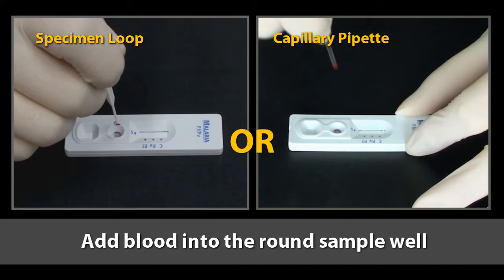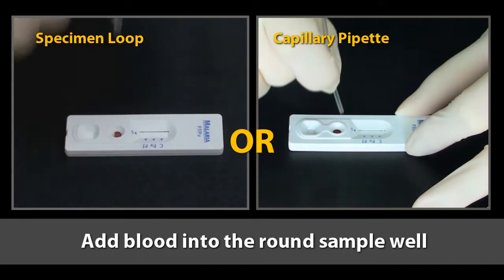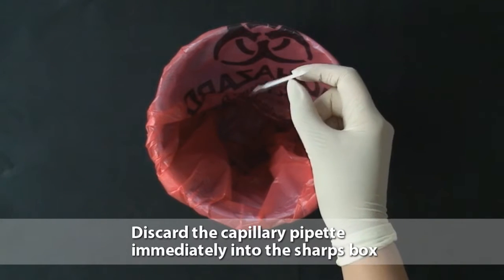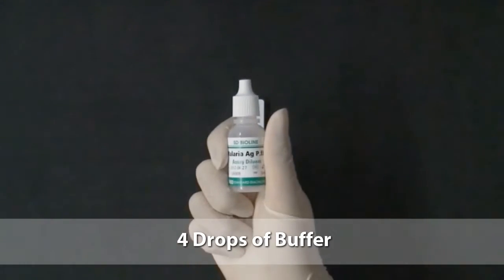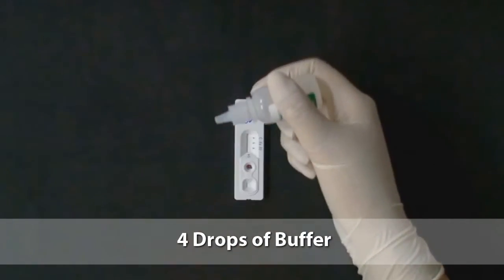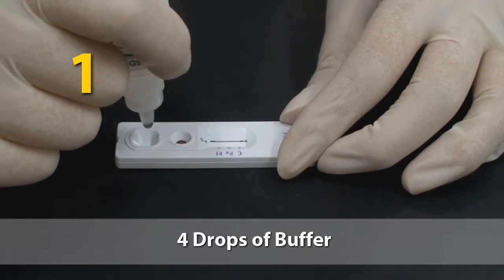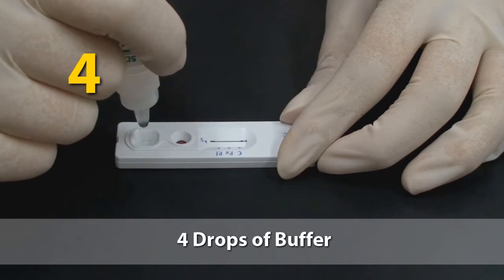Add 5 microliters of drawn blood into the round sample well, touching the sample pad. Discard the specimen loop or capillary pipette immediately into the sharps box. Add 4 drops of buffer into the square buffer well. One, 2, 3, 4.